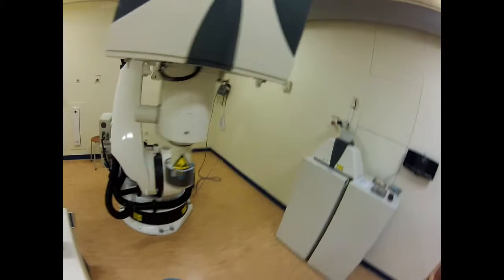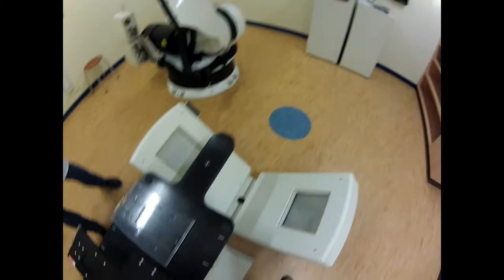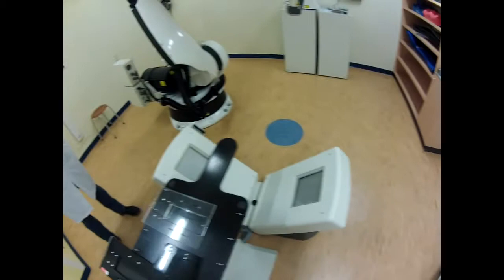this is our CyberKnife. Wow, this is nice, isn't it? How we fix the base plate to the table of the CyberKnife. And because I'm not so smart, we have Wilhelm. Say hello Wilhelm. Hi everyone.